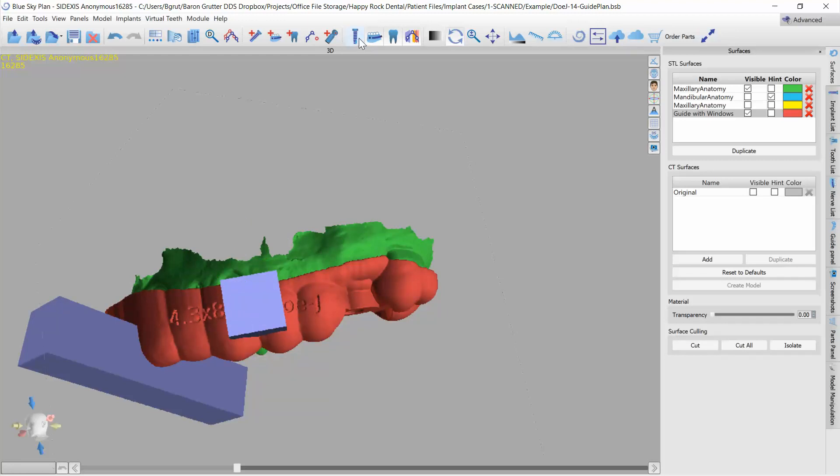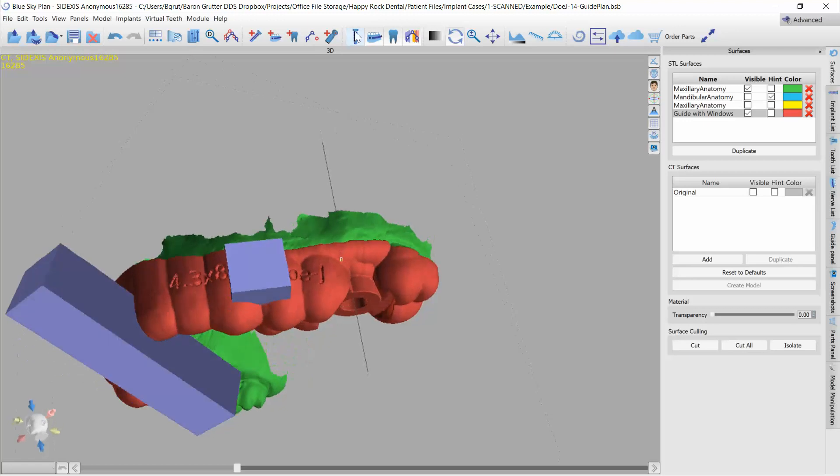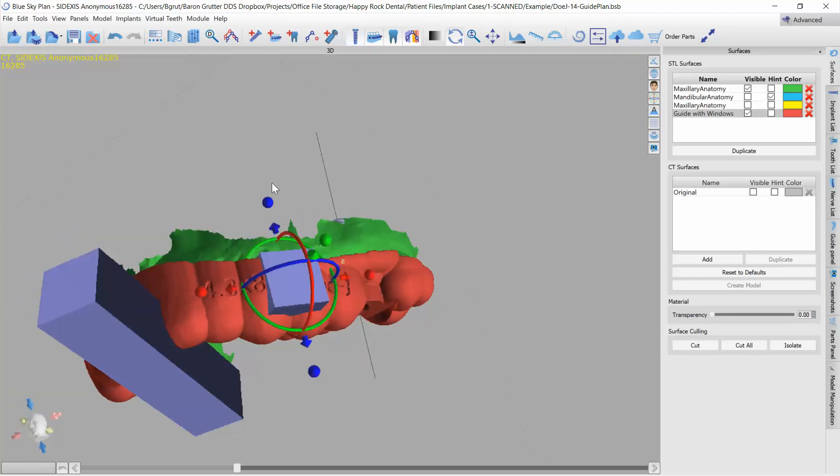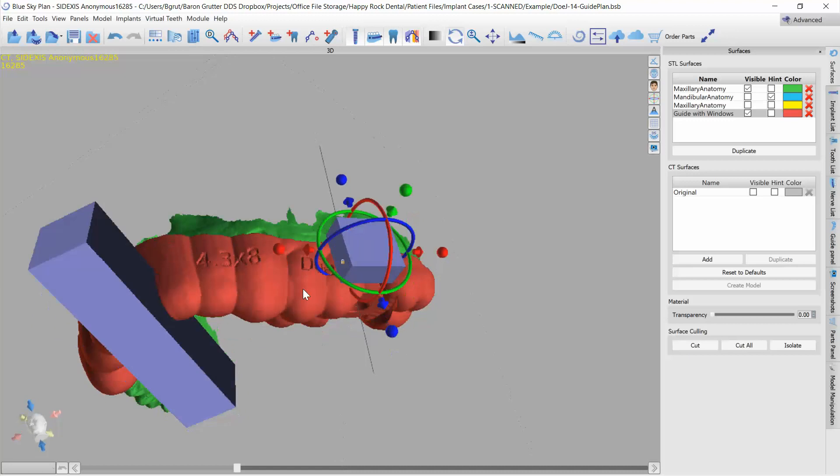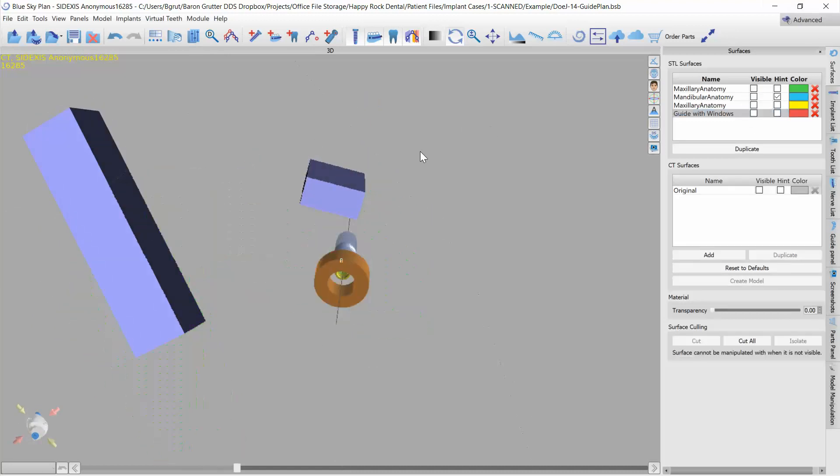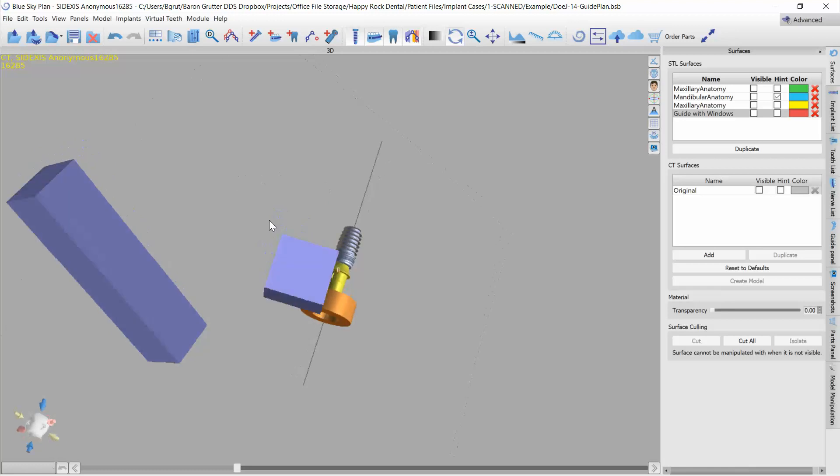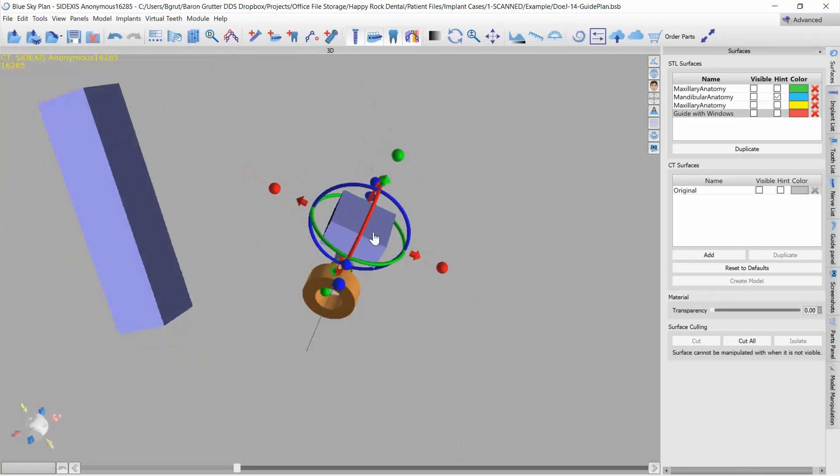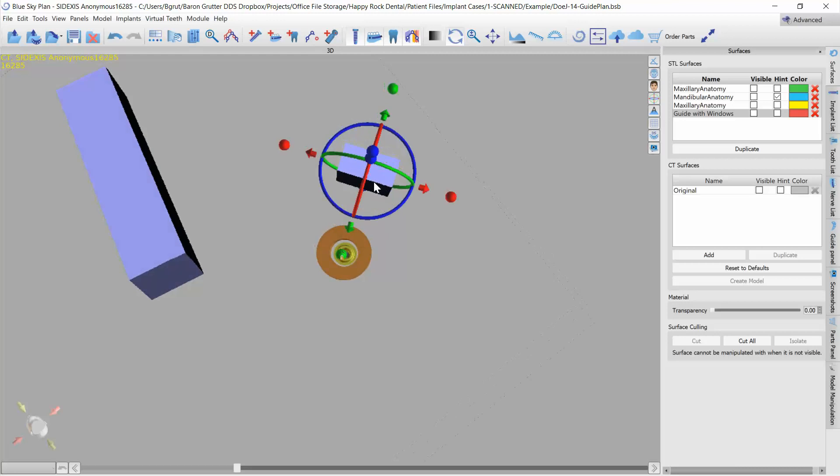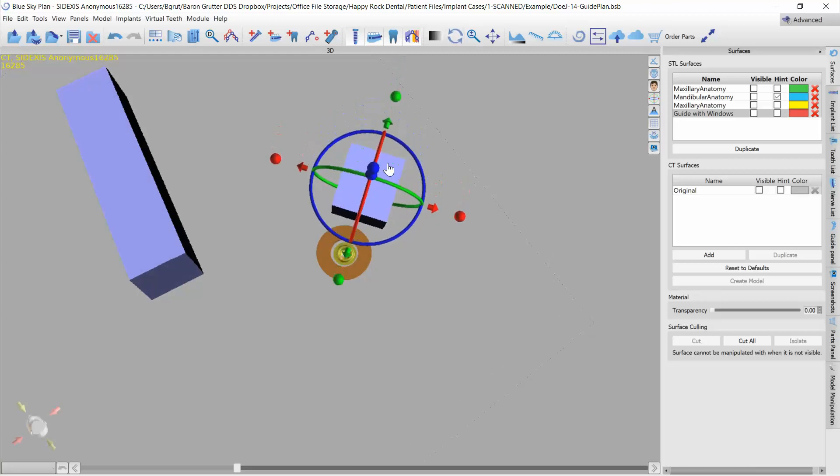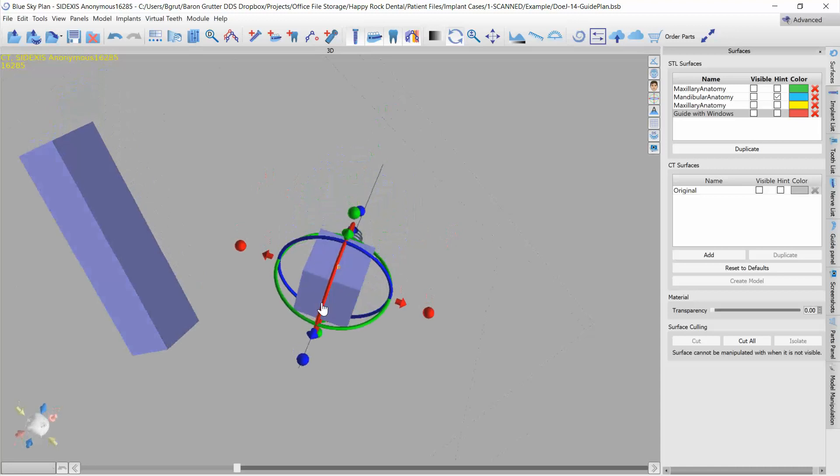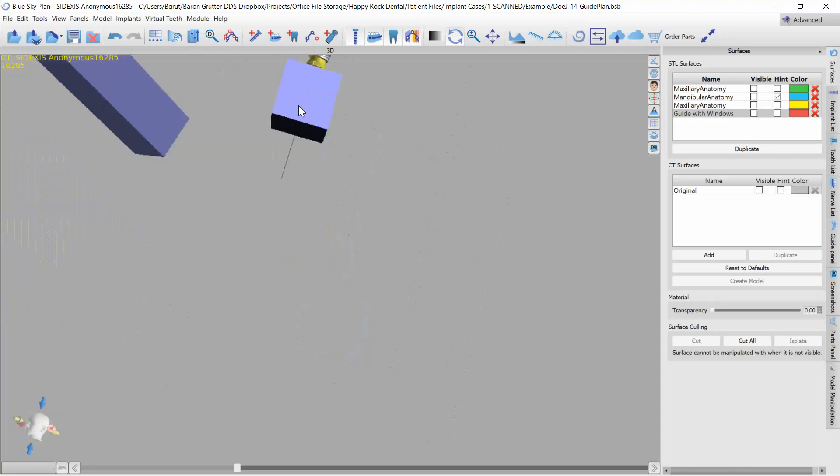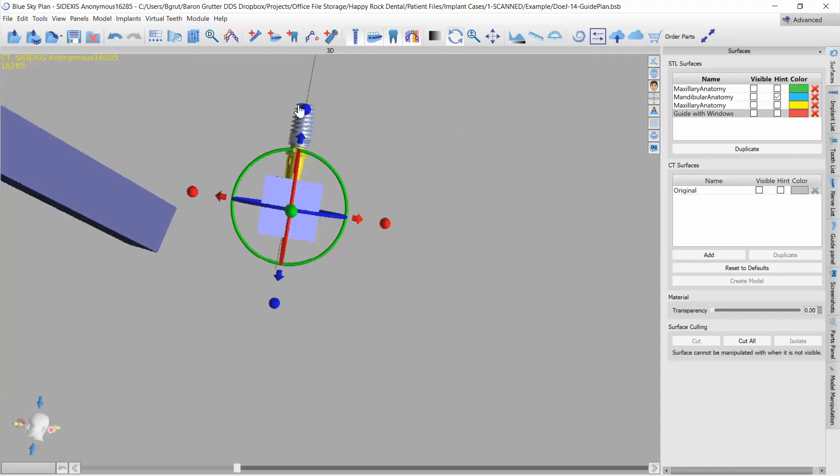Now to do this, the best way to line it up with the implant that I have found is to first turn the implant back on so we can see this line. Now I'm going to drag this line over and in fact I'm going to hide the guide and hide the model. All I want to see is the implant itself.